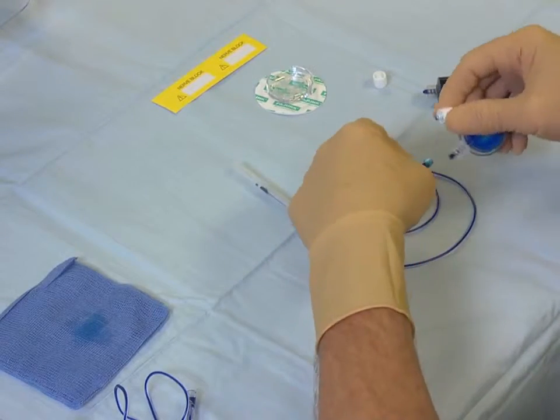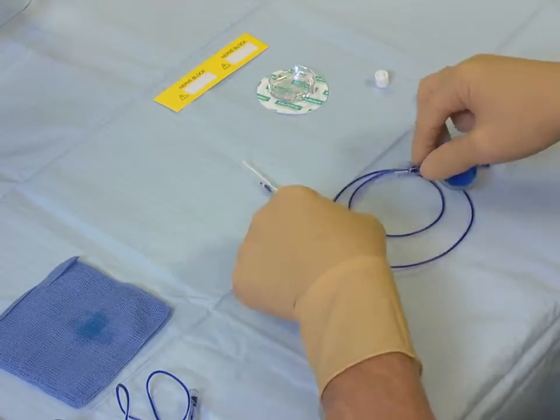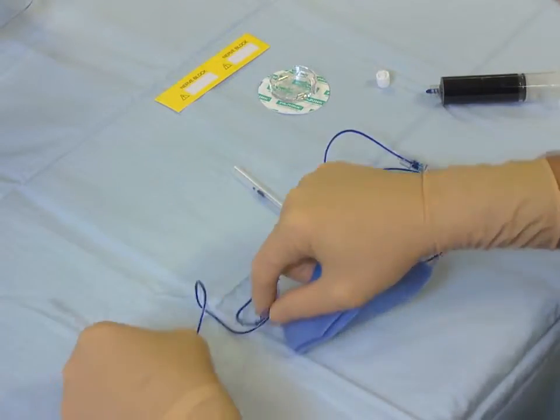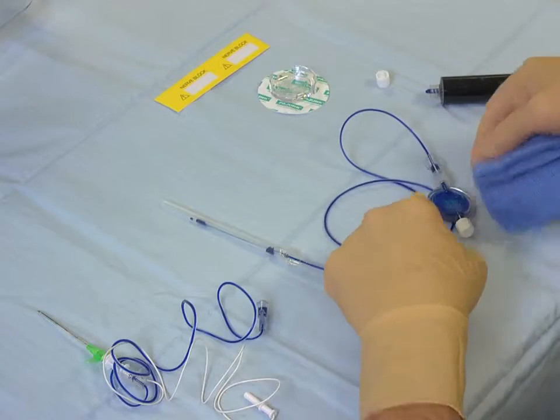If you choose to use the filter, attach the filter to the catheter in preparation, ensuring that all the Luer lock connections are tightly assembled.